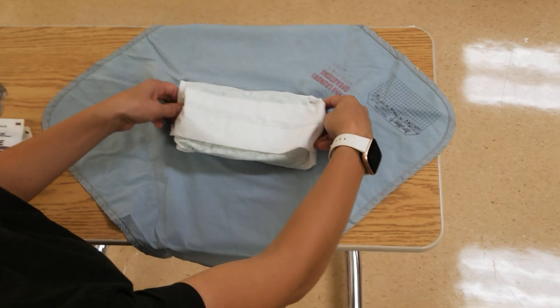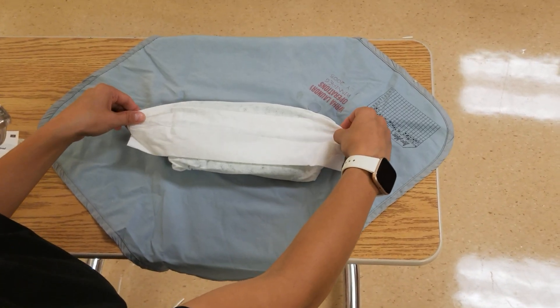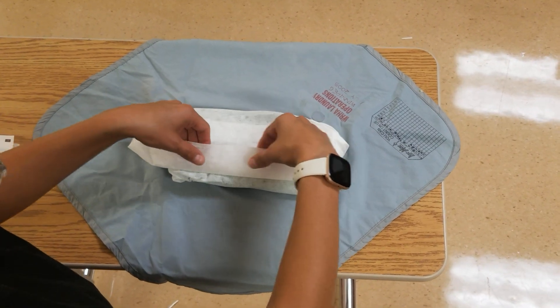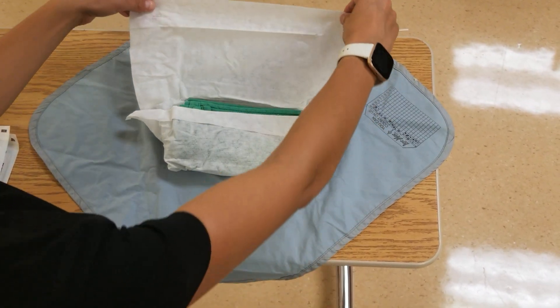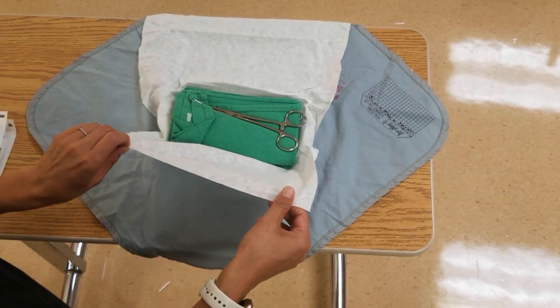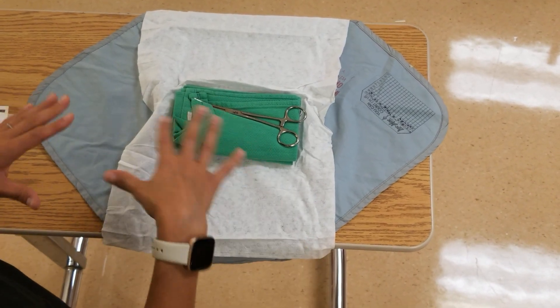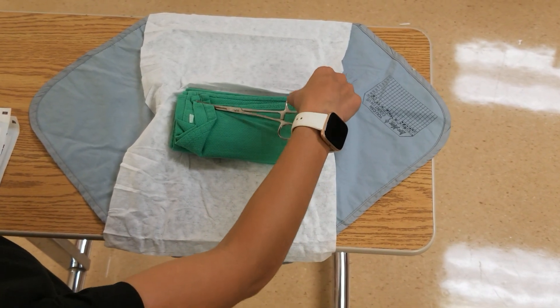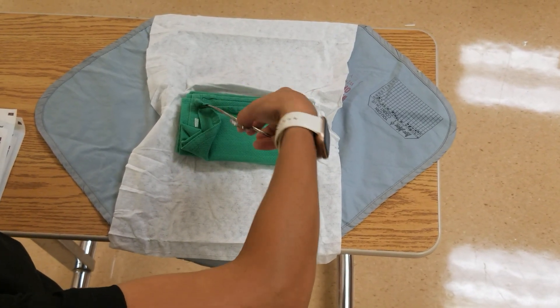There's a white inner packing that you sort of have to untuck the sides of. You'll see there's a flat there — that's your one inch — and you're going to lift that, and then there's a one-inch you can grasp there. At the top, it's always packed with a sterile green towel.